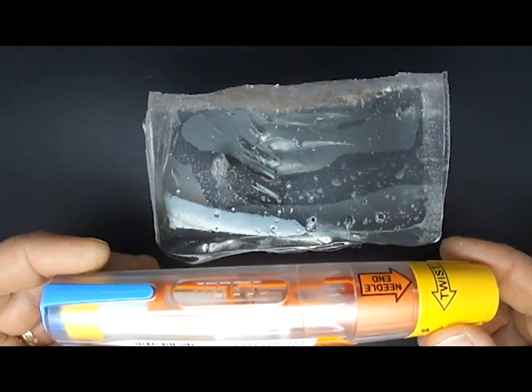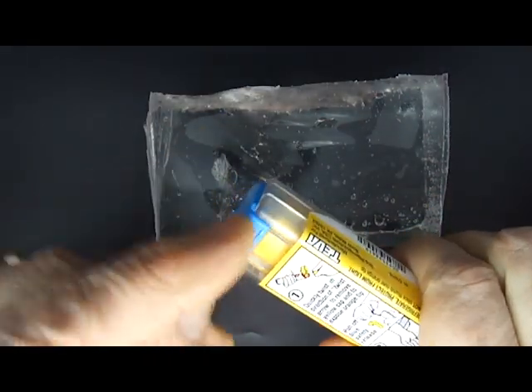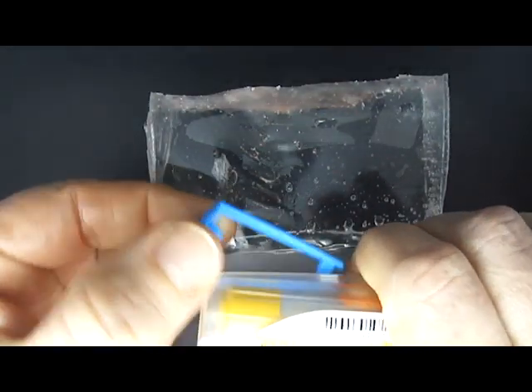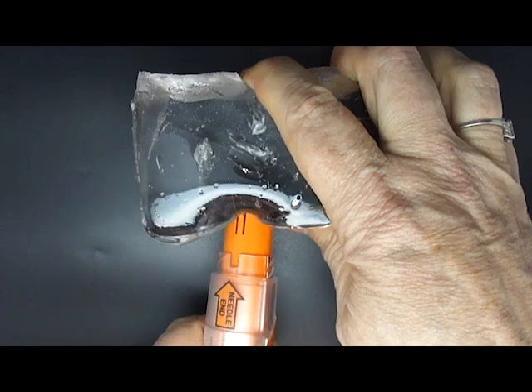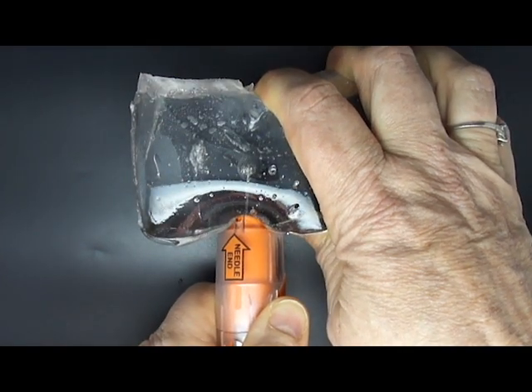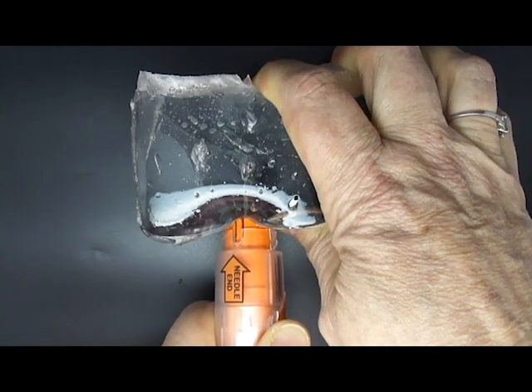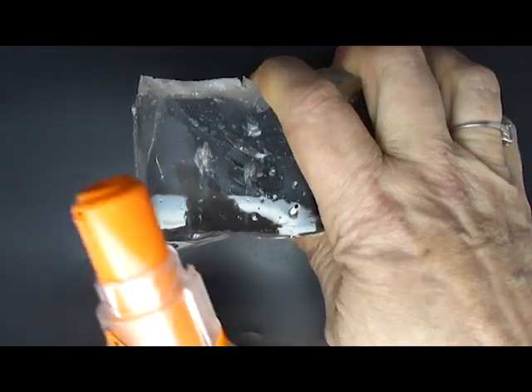Next, this is the Teva device. We twist off this yellow cap, then take off the blue cap starting from the short side and flip it forward. One, two, three — we hold that one for three seconds as well, and again the cover comes down over the needle as it's withdrawn.